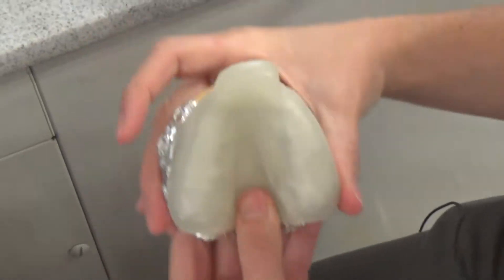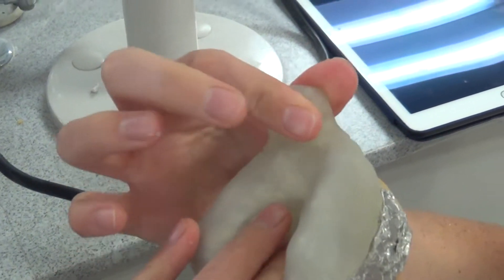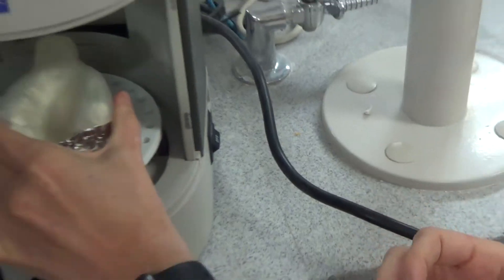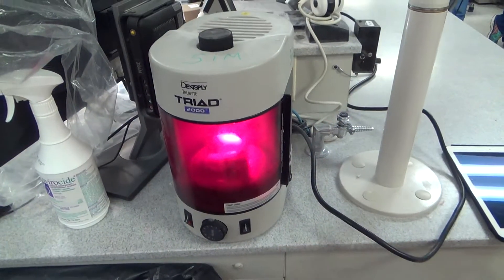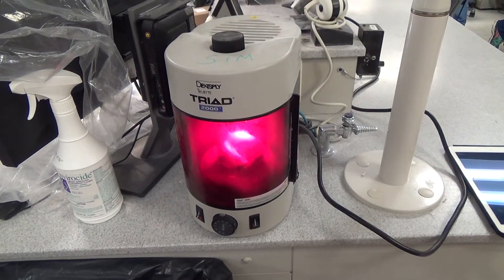Adapt the palate — you're just doing it on that palate area. Check your tray handles, because if it gets warmer faster than it cures, sometimes the handle will droop and you'll have to come back and trim it away. So check that your tray handle is still in a good position. It depends on gravity and which way you've got it. Sometimes it will go in an unfavorable position, so I check that — but usually I don't have to mess with it.